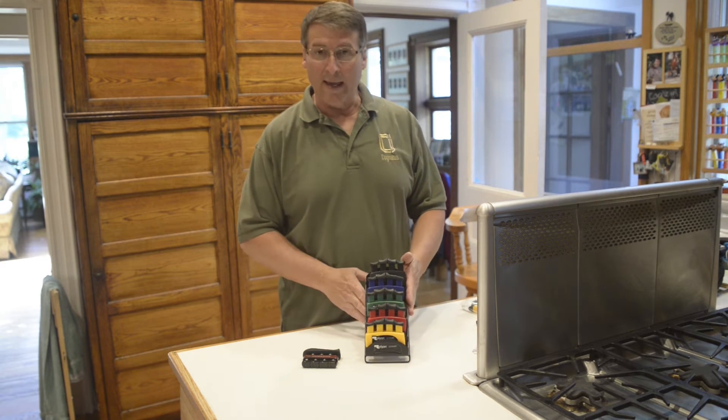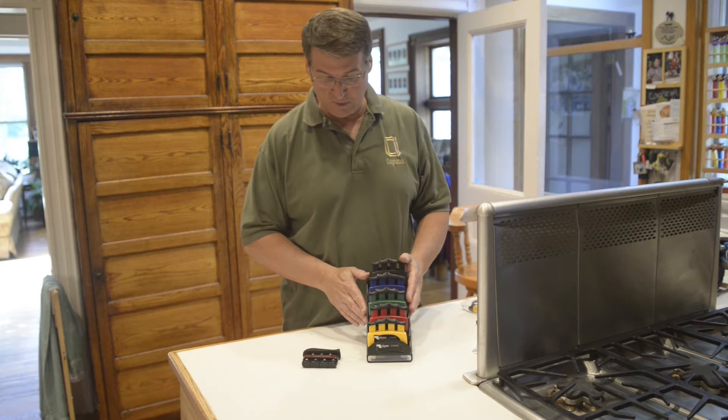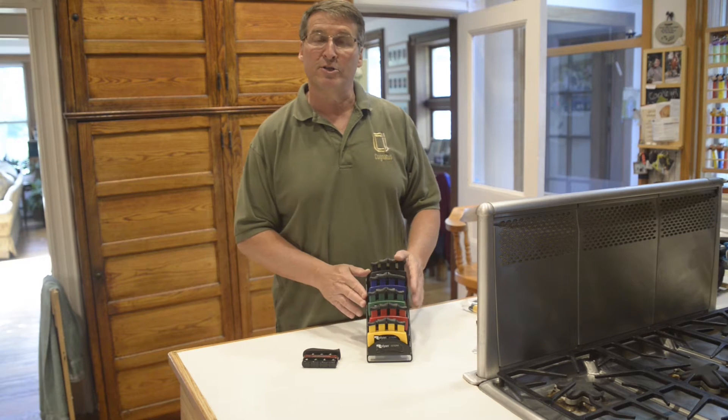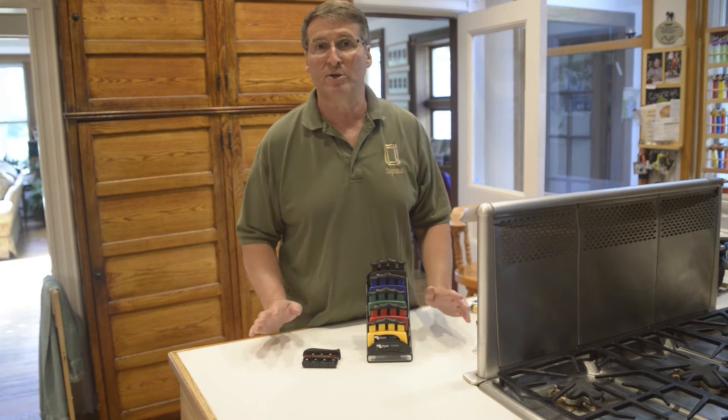We have been showing — and it's in the catalog — the UltiGrip Finger Exerciser, which has been in the catalog for about a year. This is basically a new and improved model compared to the DigiFlex, which is the de-facto standard.